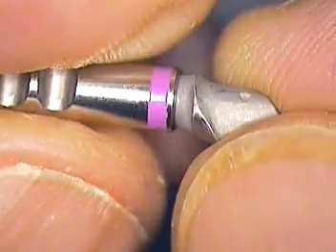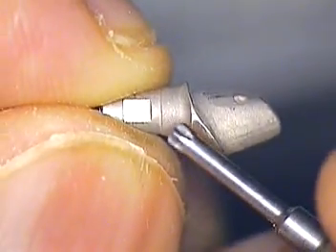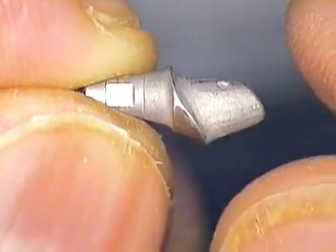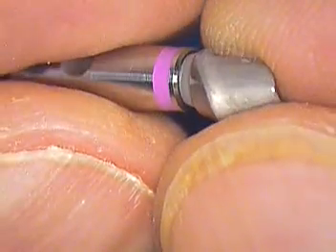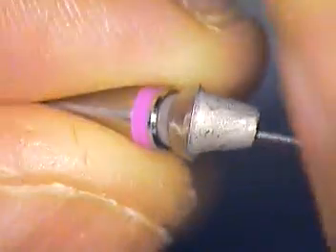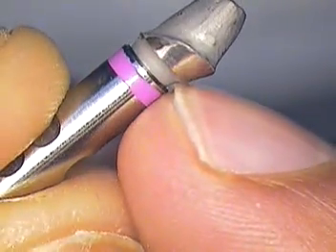When Straumann gives you the casting abutment, you wax to a certain metal rim, and that waxing should maintain the same consistency as far as polish. So this one has got to go back with a continuation slip that describes exactly what you want subgingivally.